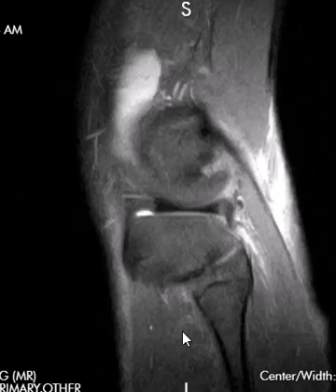Hello, this is Dr. Gay from First Look MRI, and this is a case of a posterolateral corner injury. These are always difficult, and I'm just going to run through some anatomy and show you how I attack a case like this. They're always difficult, and you always wonder if you have it right.